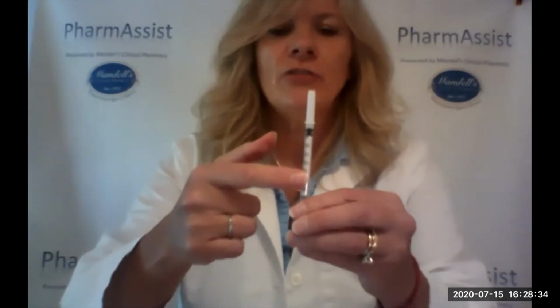And what I'm going to do is let you see that this is calibrated in international units of the drug. So meaning that when your nurse gives you your number, that's what she's referring to, the number of units for that medication that you're going to draw up. So I'm going to use the example of if I'm drawing up 150, which is the little 150 line. So what I'm doing is I'm drawing down, and the top of the plunger I'm placing on the 150, and I'm going to inject a little air.